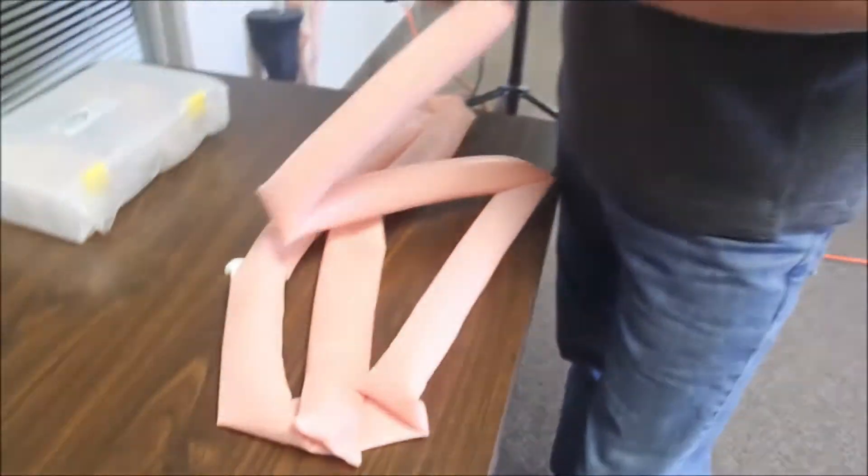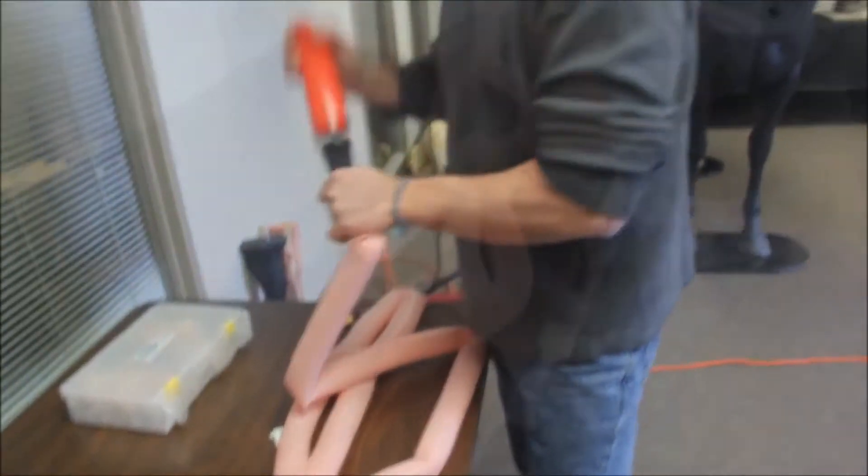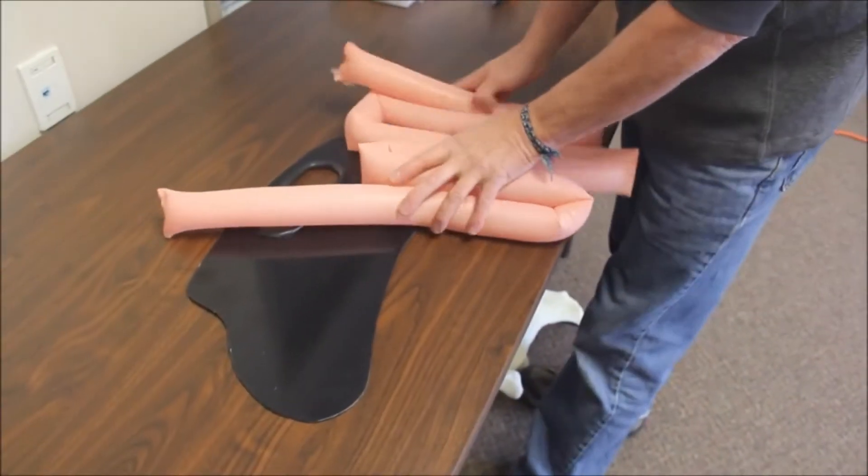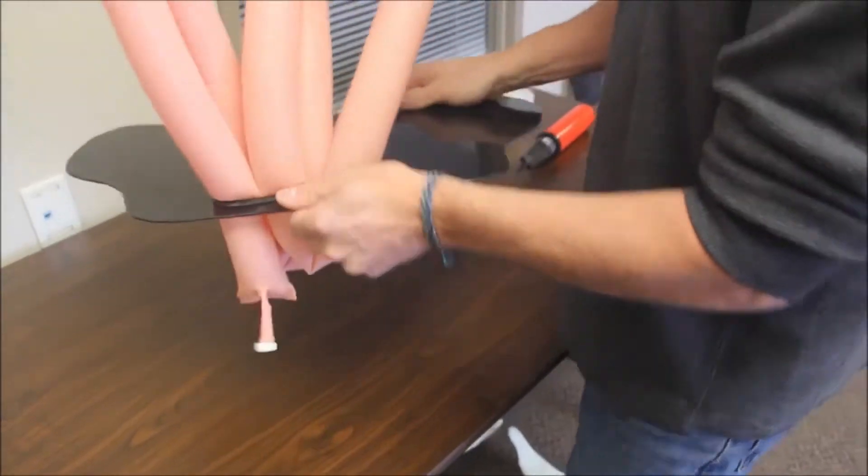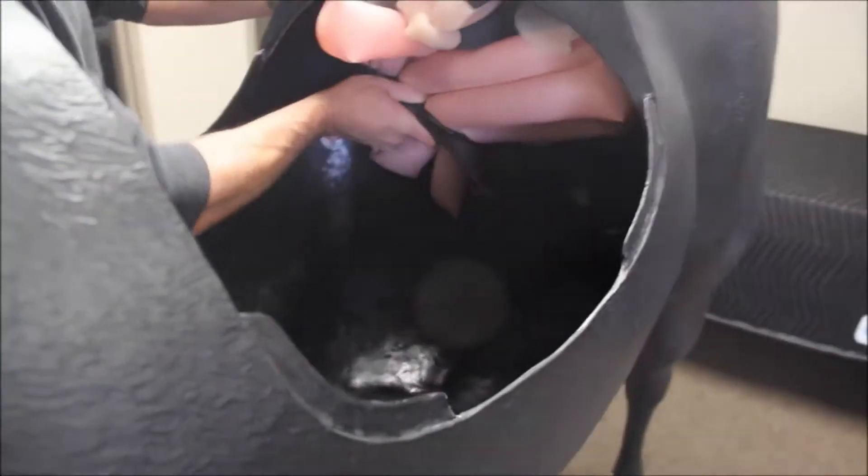A 3m long latex tube represents the small intestine and is inflated with the provided pump. Be careful not to over inflate the intestine. Three loops are created and pulled through the small intestine mount, which is then placed inside the horse body.